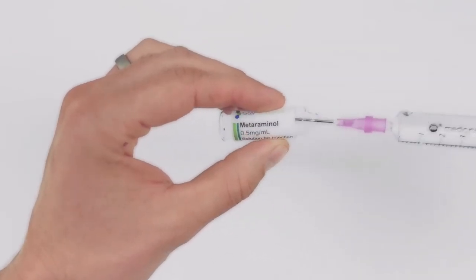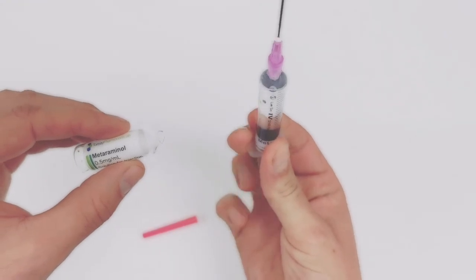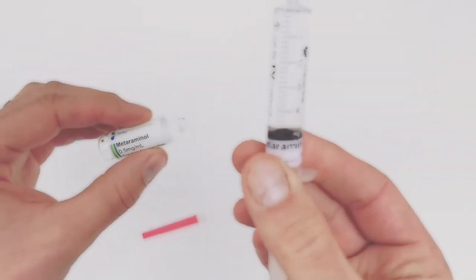Once you know you've got all of it in, you can then squeeze the air out the top. It doesn't matter if a little bit spills. Just check that you've got the amount you're expecting.